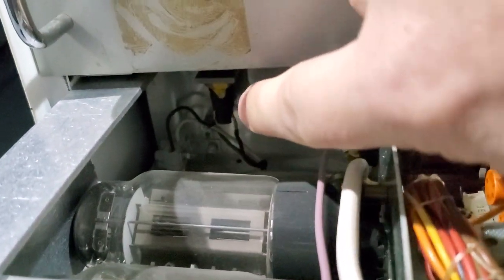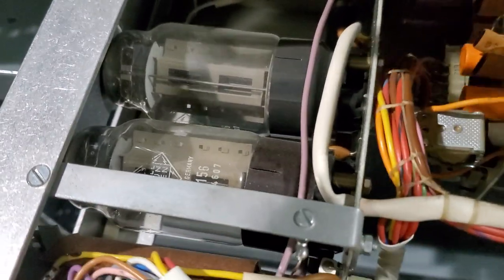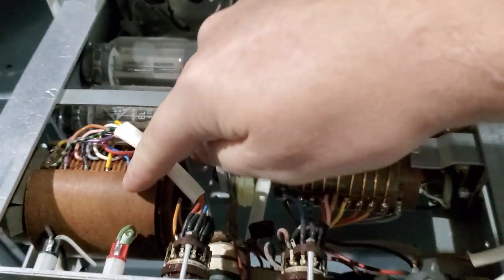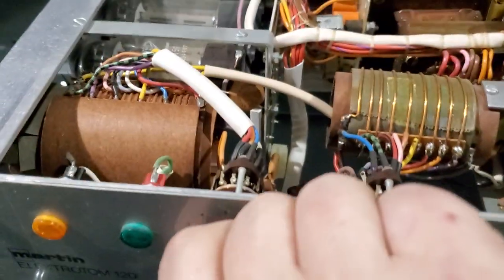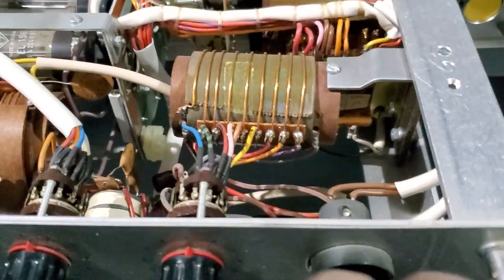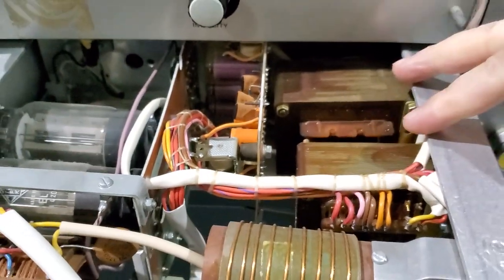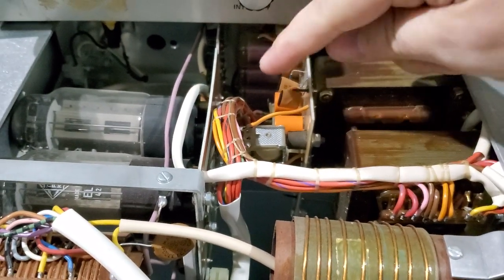It's kind of heavy. Mains power comes in the back, you have a mains fuse right there. You've got two tubes — check out these tubes. The tubes actually generate your RF energy. We've got two different variable transformers, and as you change your taps, it's changing the taps on your transformers, which is adjusting your power output. Very cool. You've got two large power transformers and what looks like an activation board, which is basically just your relays that turn it on and off.